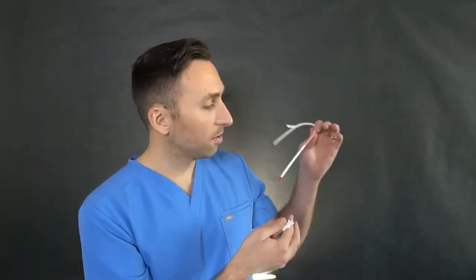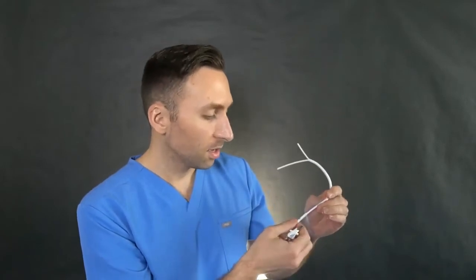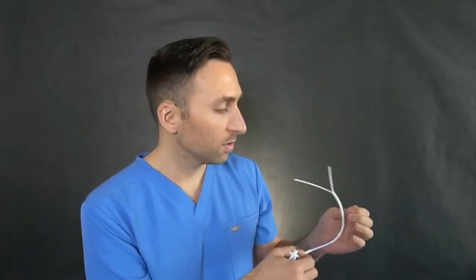The catheter actually comes separate — we have to put it together and cut right here, though I don't have scissors in the kit. They're usually provided on the table. Let me walk you through the whole situation.